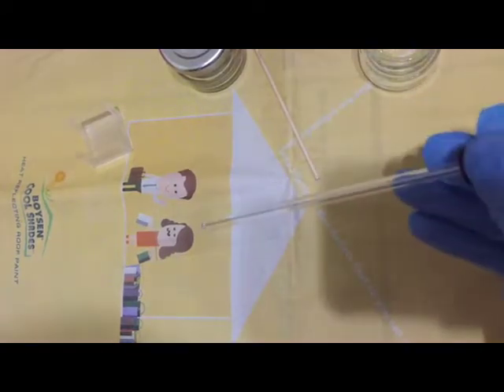To prepare your direct fecal smear, place a drop of NSS at the center of a clean microscope slide.